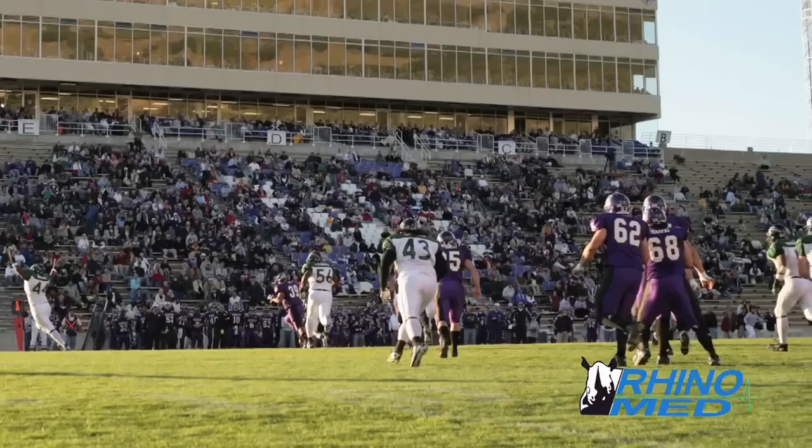The cart is movable whether I need it in softball, whether I need it in soccer, whether I need it in football.